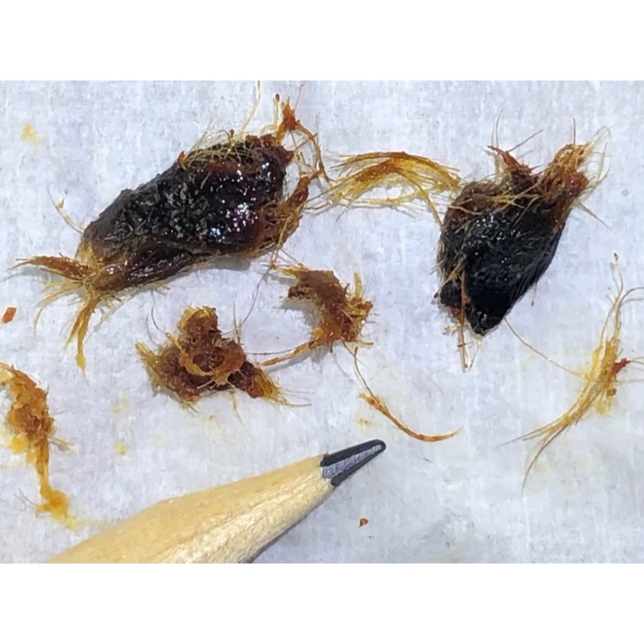And that's the earwax and keratin plugs and all the hairs that I extracted from patient two. If you are interested in the Waxscope, please do email info at clearwax.co.uk. Thank you.